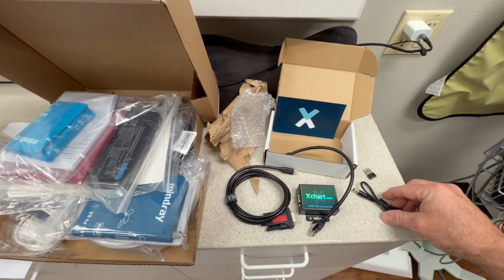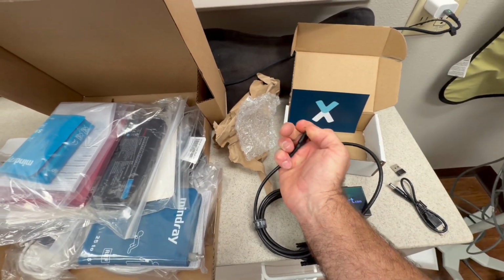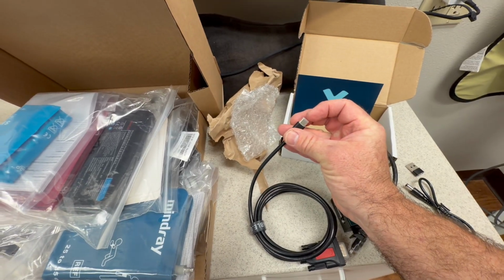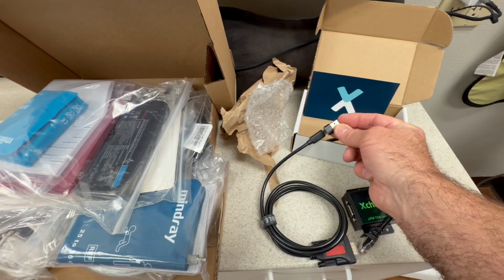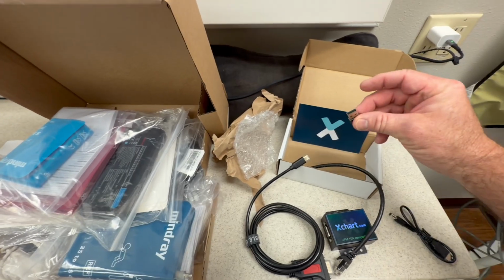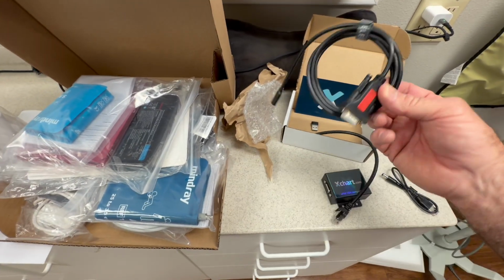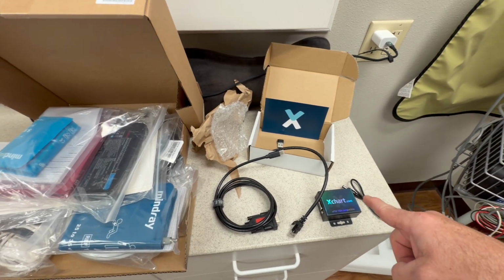The cable has a C adapter on the end that will attach to your computer. If for some reason that C isn't compatible with the PC you have, then you can use this adapter that comes in the box to attach your C and make it a larger USB connection. Most computers, even the older models, will have the larger USB connectors. We're kind of moving to the smaller ones for newer computers, but that's why most of us will have this, and we'll have the C. And then, like I said, I'll show you how to combine these together.